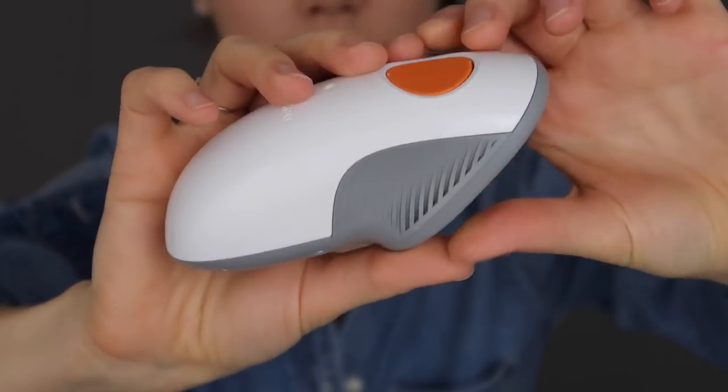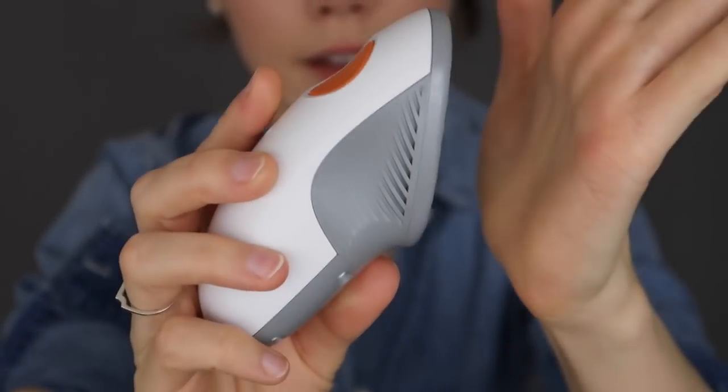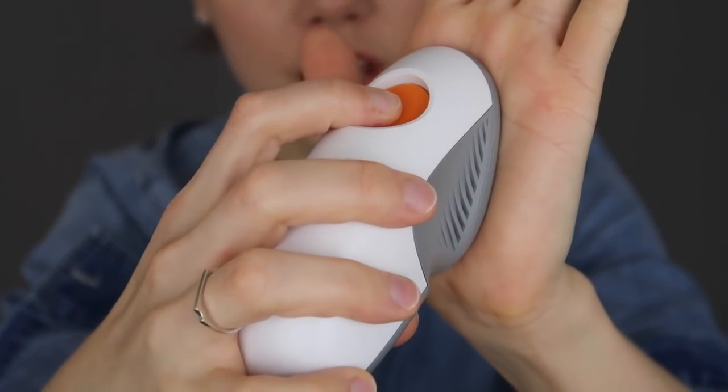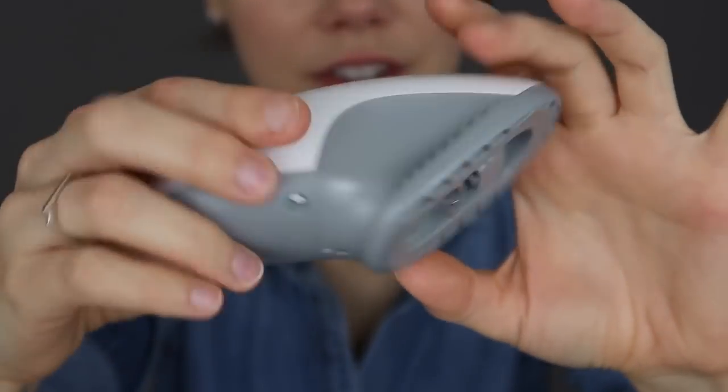I was aware, yes, but I wouldn't equate awareness to pain. And that being said, the insertion process was extremely easy. They have updated it from G5 to G6 - this is the new inserter, so it's very, very easy. All you do is pop it against the skin, push that button, it's automatically introduced, and away you go. Basically, if you know how to put this against something and push a button, you are a master.